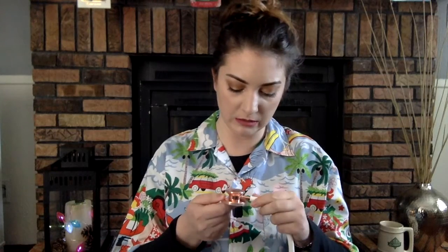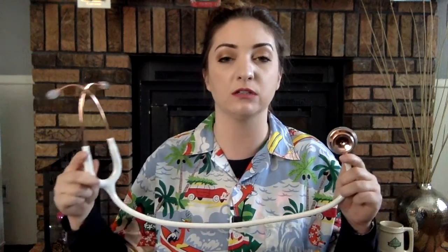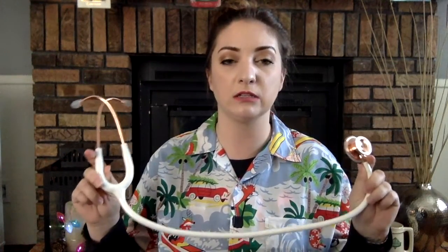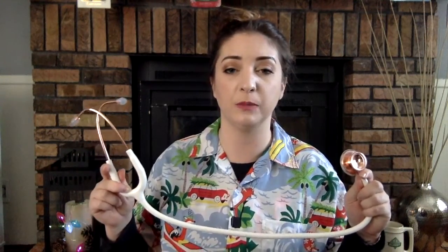This is an MDF — it says MD1 Rose Gold Edition. Here's the stethoscope. It's cute. I ordered it fully knowing what I'd get because there is an LPN at my job who has the same exact stethoscope. I used it for probably about a day and a half just so I could do a good review on it. By that time I had probably already roomed about 60 patients, so I had enough experience with it to review it. They actually came on the same day as my other stethoscope, which was great. I want to hold on to it because it's cute, and it never hurts to have two stethoscopes — what if you forget one?